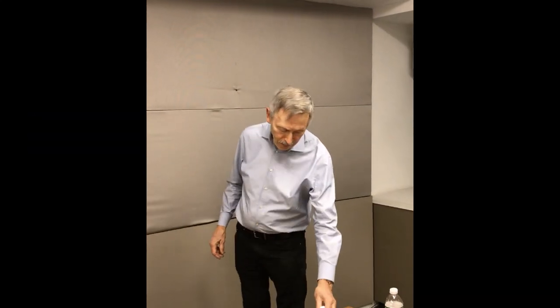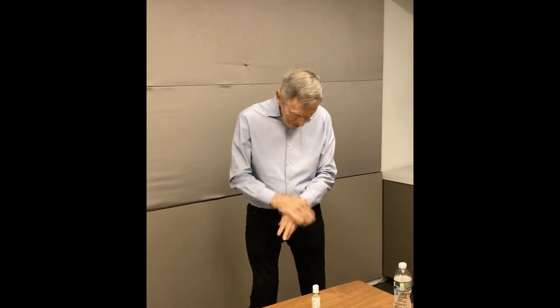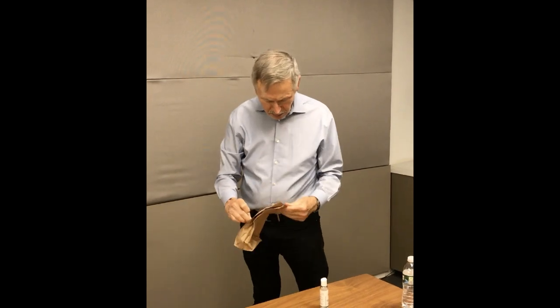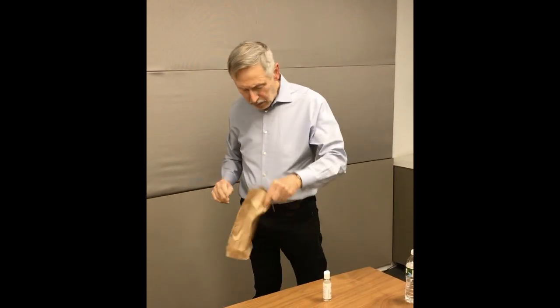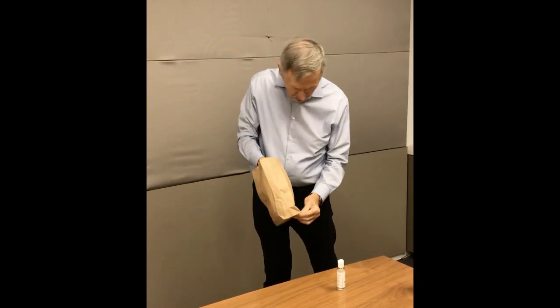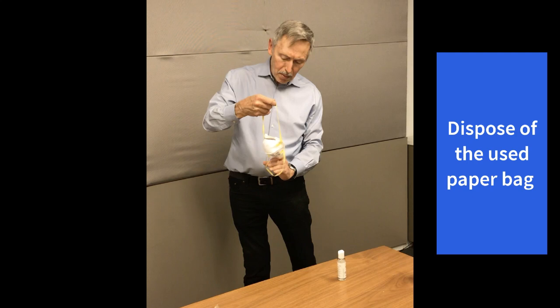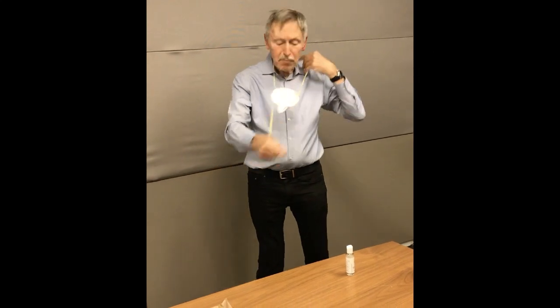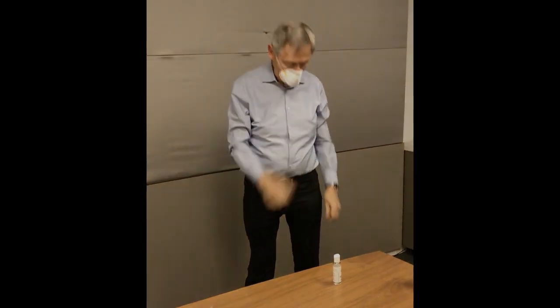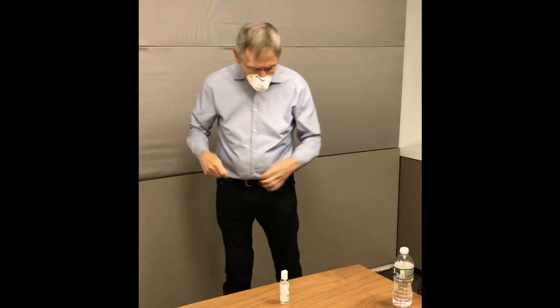Okay, so let's summarize. Bill comes in, grabs his hand sanitizer, and sanitizes his hands thoroughly. Then he proceeds to get his paper bag with his mask in it, opens it up carefully, reaches in, looks for the straps — do your best not to touch the respirator. Grab it by the straps and open it up. Remember, the bottom strap first goes around your neck, then into your chin, up through the crown of your head. Every time you touch the nose piece or your respirator, you must hand sanitize afterwards. Do this all day long.